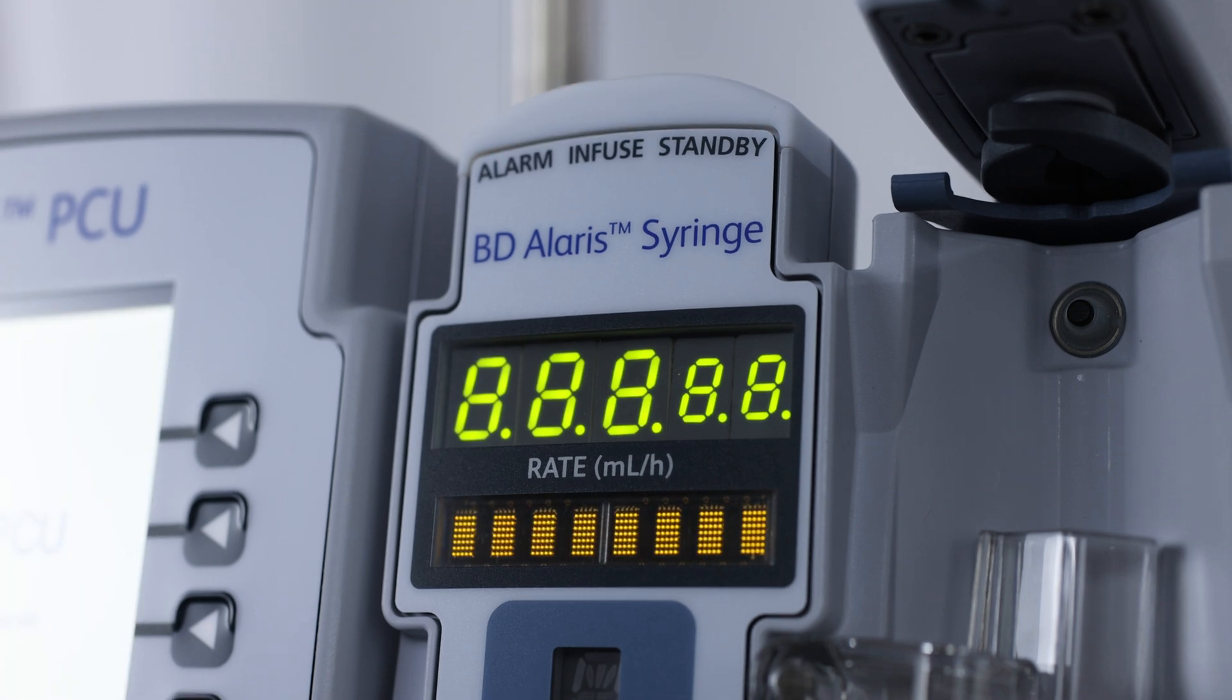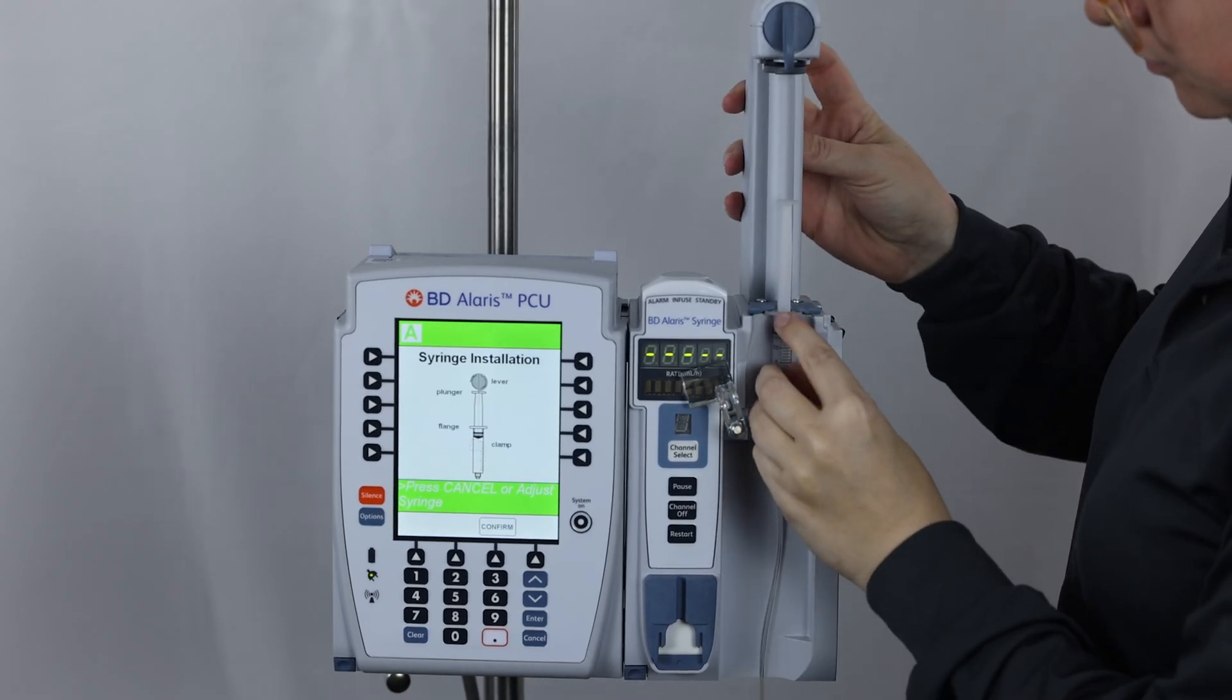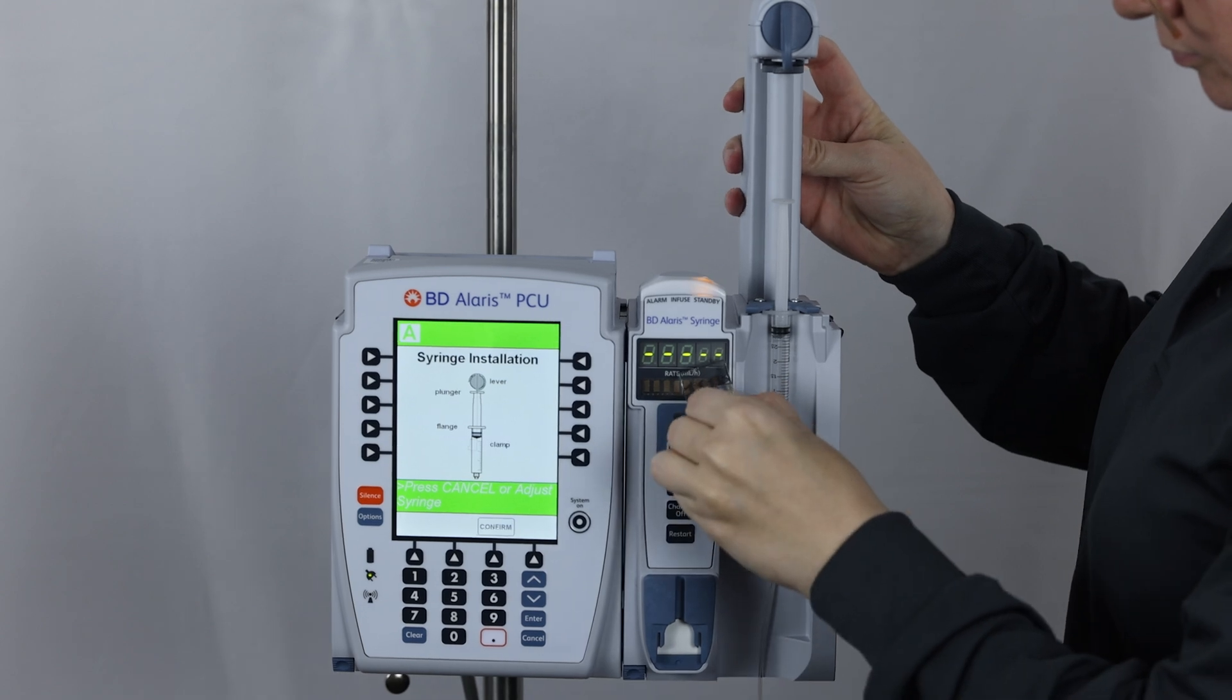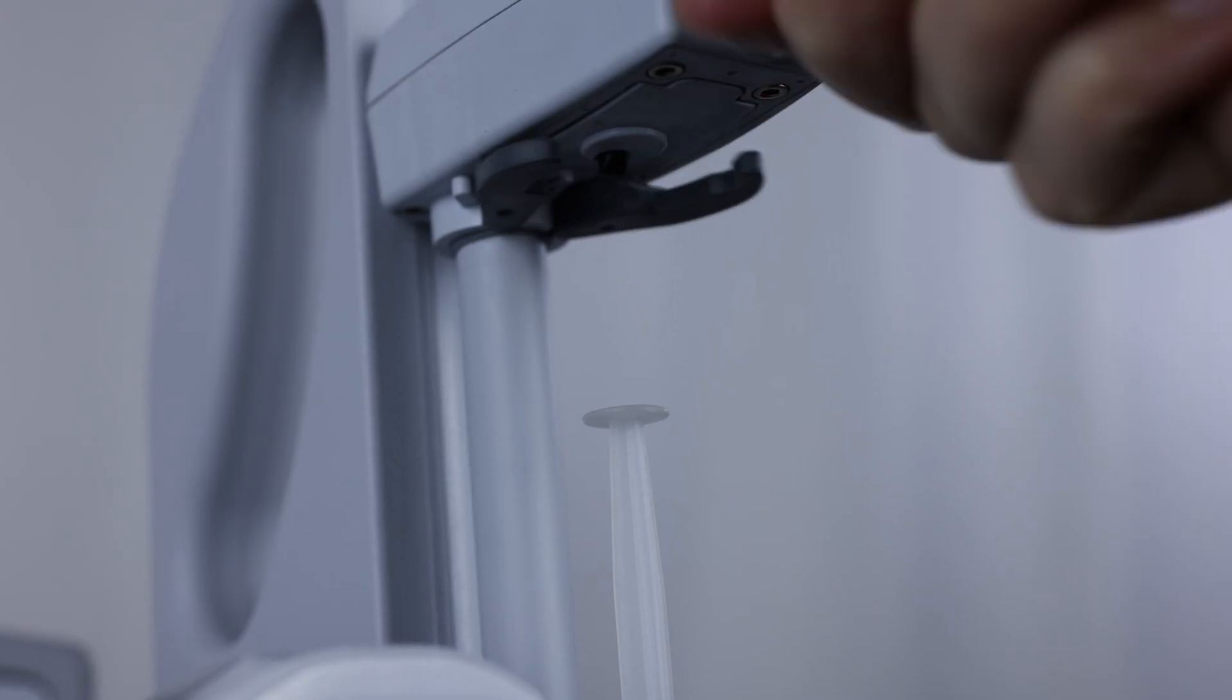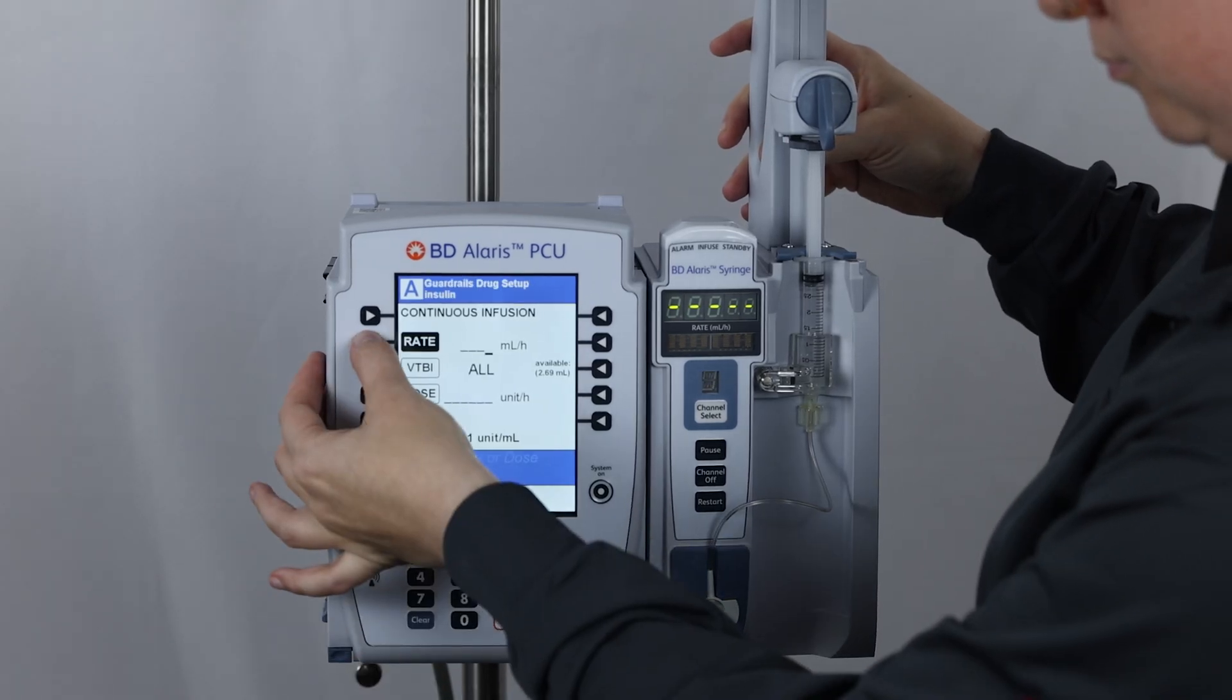The bright color screen and numeric keypad make it simple to program an infusion. Intended for the delivery of fluids, medication, enteral nutrition, blood and blood products, the Alaris syringe module uses standard single-use luer lock syringes to deliver fluids to patients.